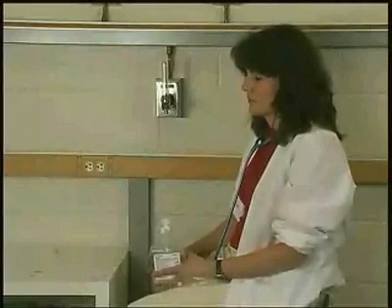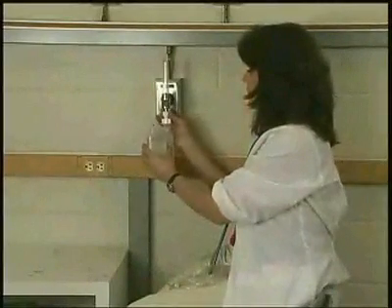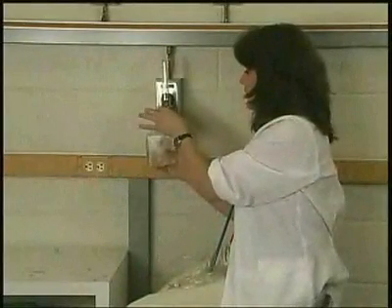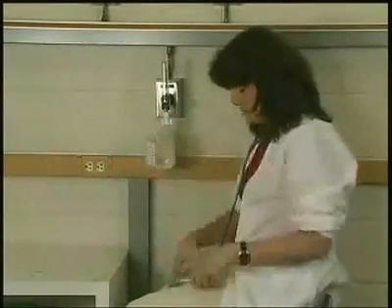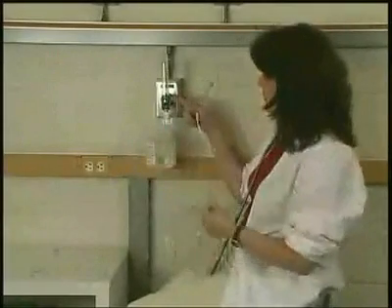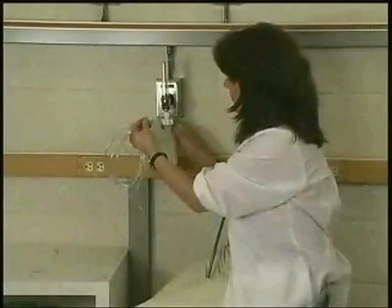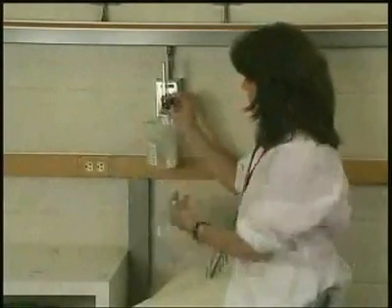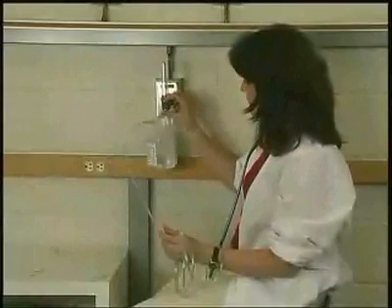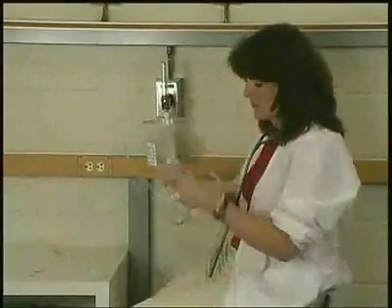A humidifier is used to add molecular humidity to dry gas, such as from an oxygen cylinder or coming from the wall outlet. It simply attaches to a flow meter and directs the gas through the sterile water solution to humidify the dry gas. Small-bore oxygen tubing can then be attached, such as a nasal cannula, to deliver it to the patient.